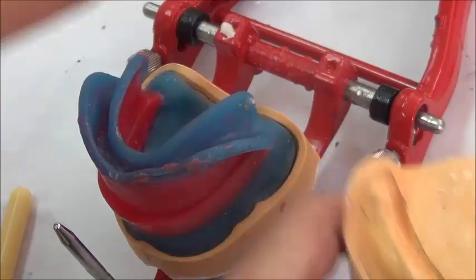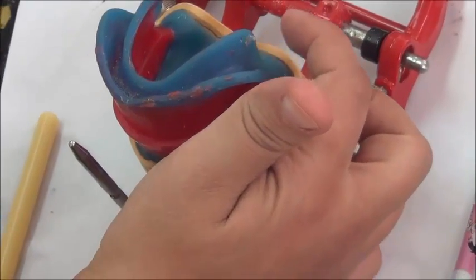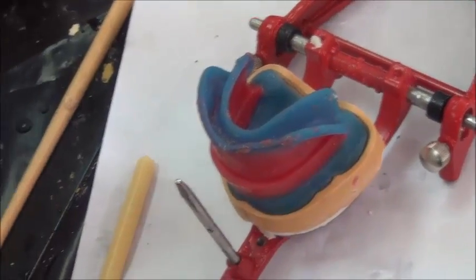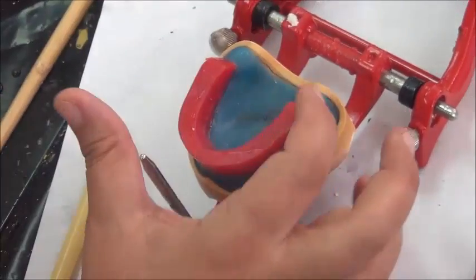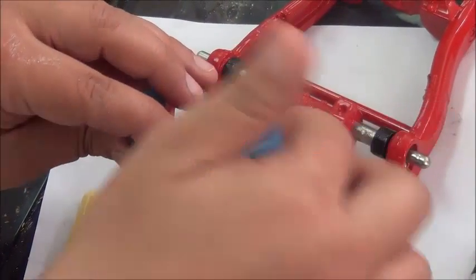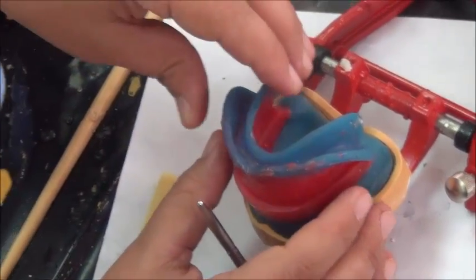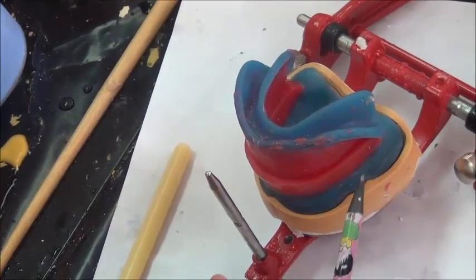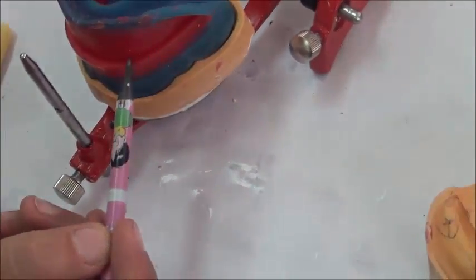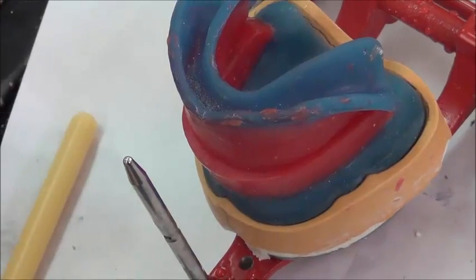what we call the heel, this is the base plate going over the retromolar pad area. Remember that the retromolar pad is going vertically. So its base plate will also go vertically. So we want to make sure that this heel area, which was over the retromolar pad, is not hitting the lower base, and it's clear from the wax. And this was the main function of the bevel we made here. We made it to make sure that this base plate going vertically does not hit over the wax. We want the base plate clear, and we want a totally intact surface between the lower wax rim and the upper by having both occlusal tables totally flat.